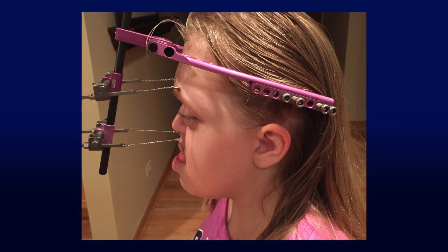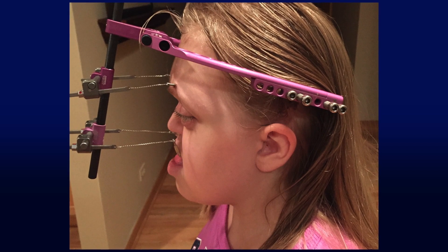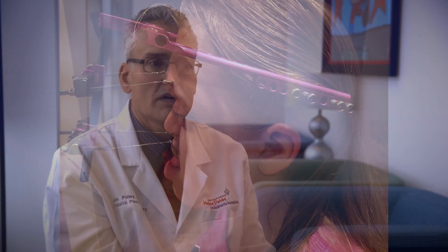Another very important indication for external distraction is mid-face distraction — moving the forehead region, the eye region, the cheekbone region, the nasal region, and the upper jaw forward through various bone cuts. Distraction has been a phenomenal application for these patients for a number of reasons. It's a very risky surgery in terms of post-operative infection — risky enough that many centers had actually banned certain techniques because the complication rate was too high. With distraction, because we're moving the bones very slowly, we don't create large open spaces in the nose and brain cavity; that slow movement allows everything to heal quickly, preventing infections and complications. It's essentially a necessary requirement for today's treatment of these patients.